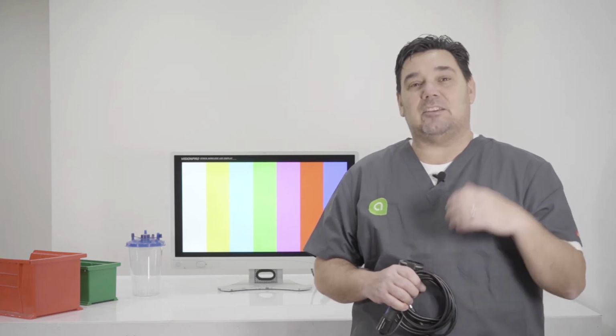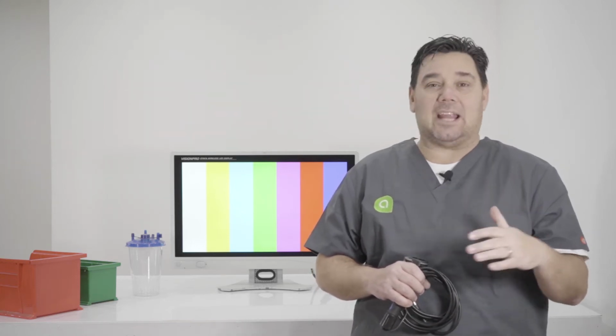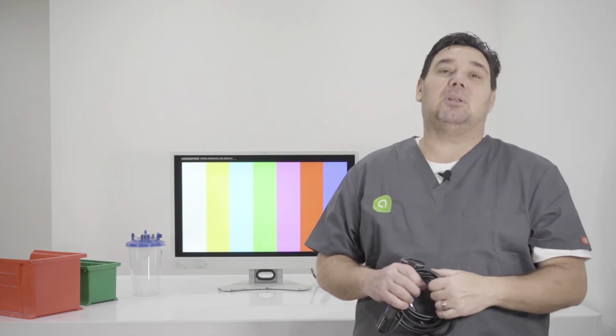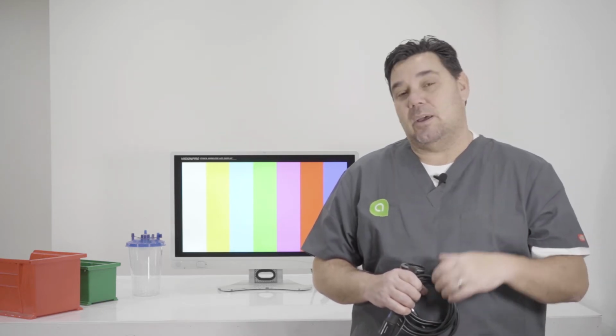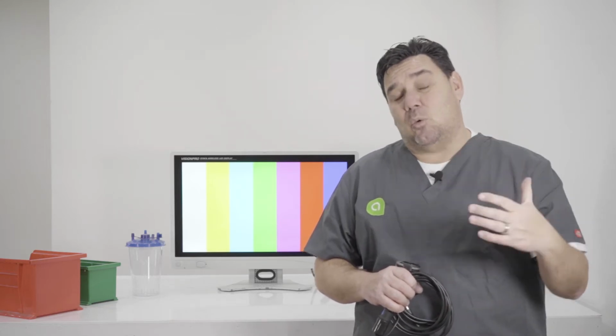a video monitor. The most important thing to always remember whenever you're using a video system is to make sure that you white balance. And white balance is telling the camera that white is white. Once it knows white is white, then it's gonna know red is red, blue is blue, green is green. So very important to remember, and one of the steps that I think gets missed sometimes when you plug the camera in.